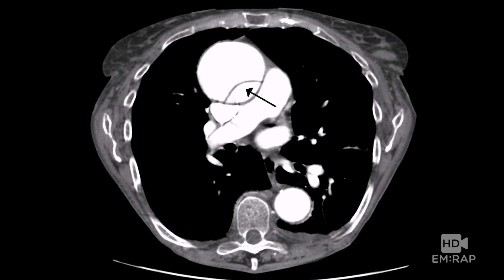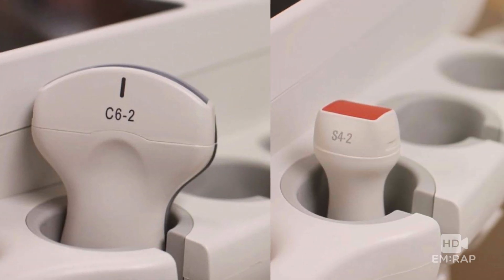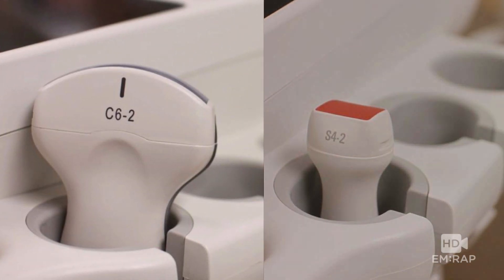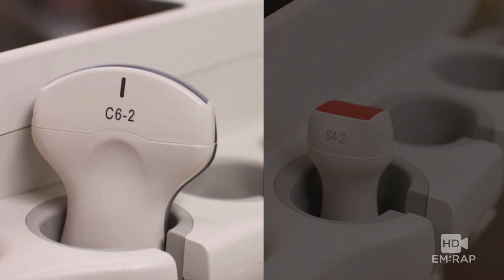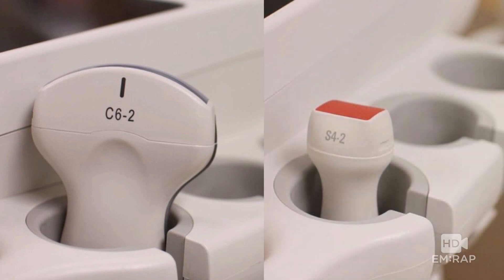Hey guys, my name is Jacob Avila and today I'm going to talk to you about how to diagnose aortic dissections. Your probe of choice for this exam is going to be the curvilinear or phased array transducer. Personally, I'm a huge fan of the curvilinear probe over the phased array, but the phased array would work just fine if that's what you have.